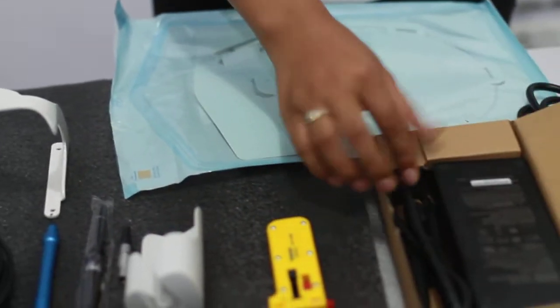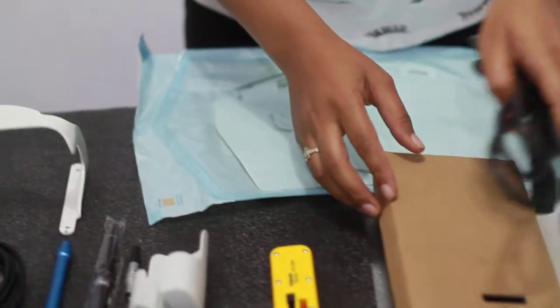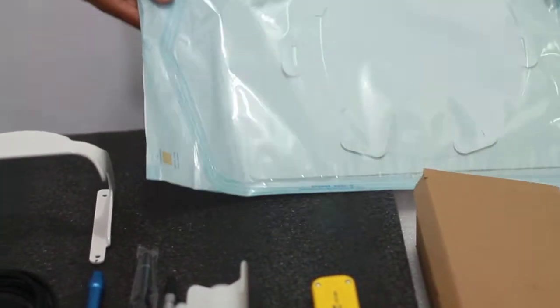In this box, you will receive an adapter. This is your charger. And this is your fiber.